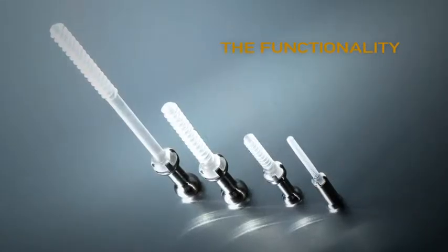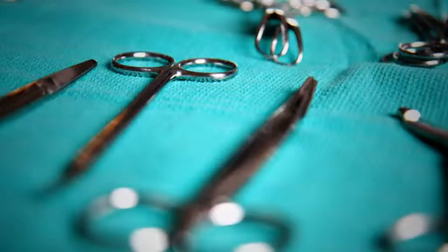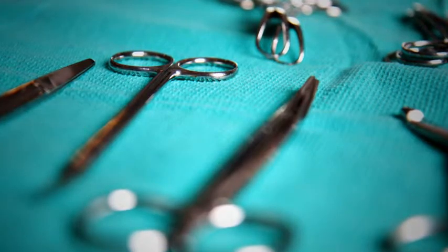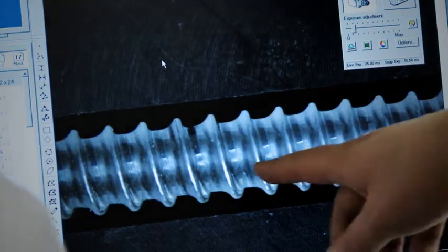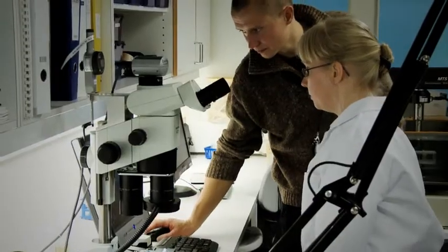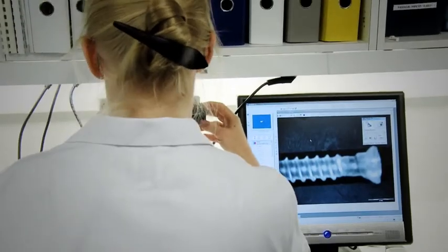The functionality of the Activa screw begins during surgery, actively maintaining fixation after implantation which is conducive to proper ossification. The experience contributed by the surgeons led product development in the desired direction with patient safety and ease of use as watchwords.